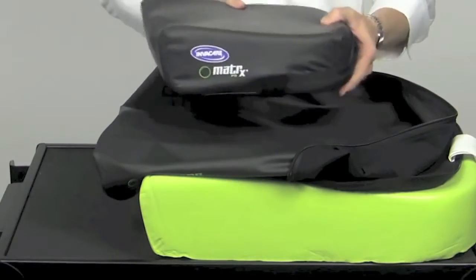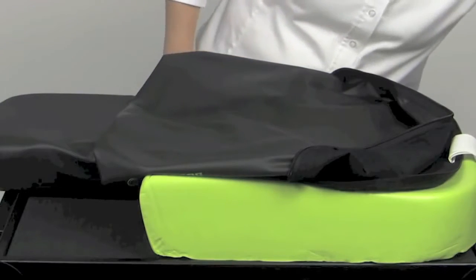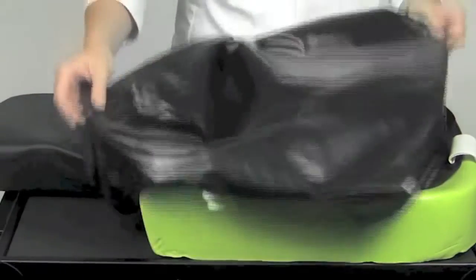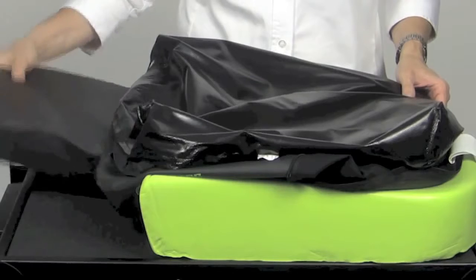In addition, each PS Cushion has a moisture resistant inner cover, which helps to maintain the integrity of the foam. The sizes range from 10 by 10 to 30 by 30.